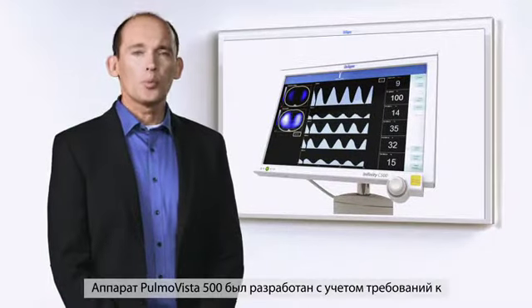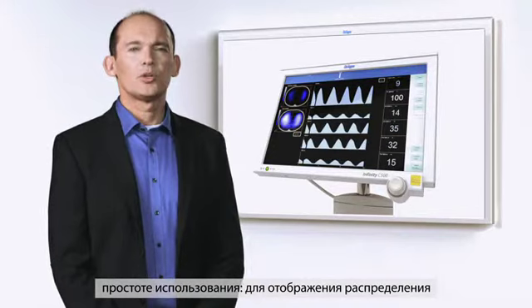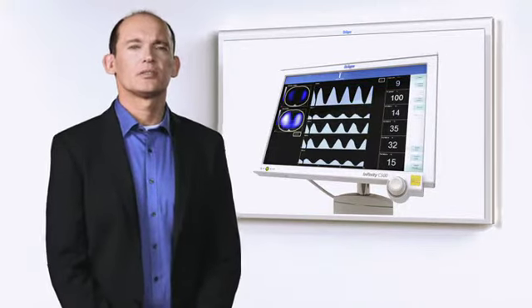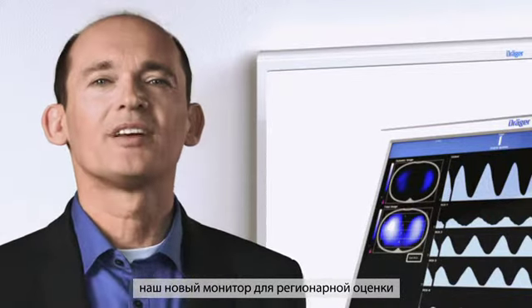PulmoVista 500 has been designed so that it is easy to operate. Minimal user interaction is required to display distribution and ventilation, even over a period of hours. I hope I have been able to give you an insight into how PulmoVista 500, a brand new regional ventilation monitor, is making ventilation visible.